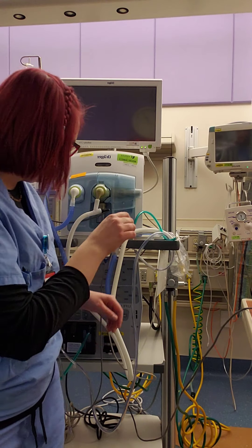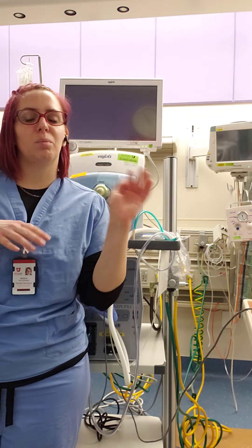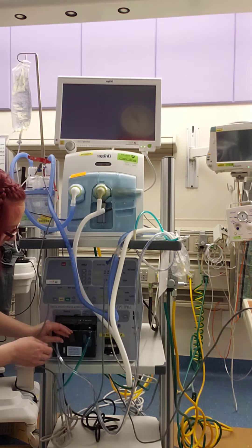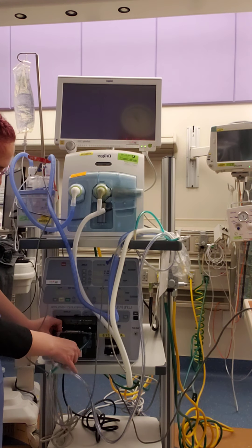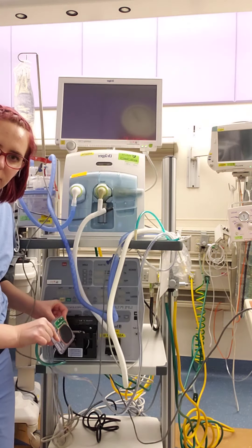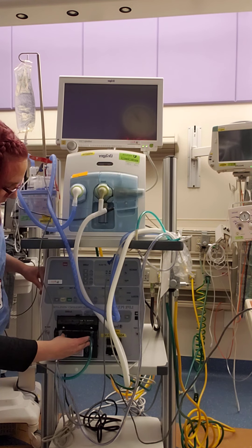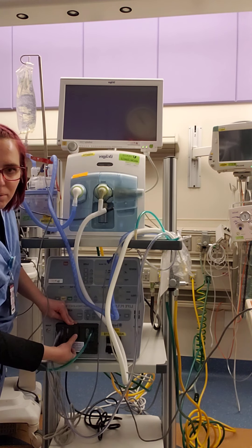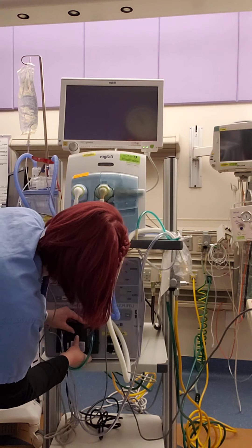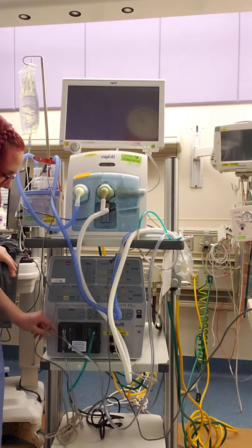The way I think is easiest to set up the jet is to move from the cartridge out — from the base of my equipment outward. In here we have a little cartridge that helps with our water feed; it comes in and out, clips in — it looks like a little cassette tape. You feed it right in and then push it in and clip it down so it's securely in there. This is the part I struggle with most on a consistent basis.